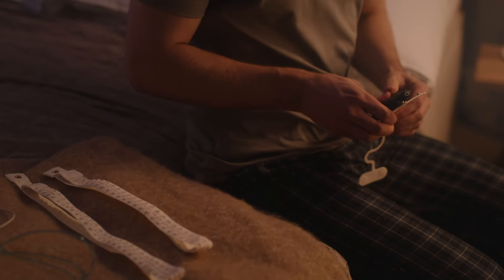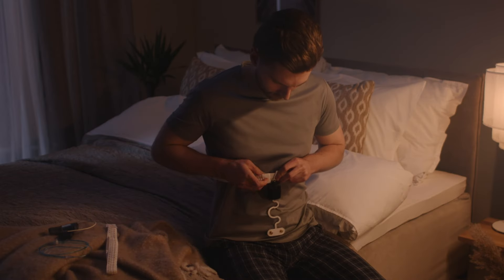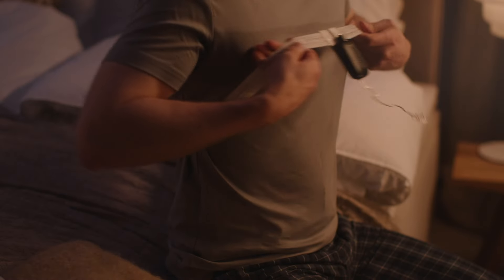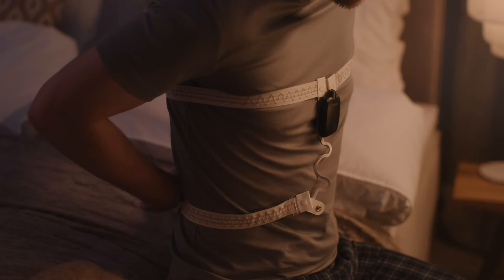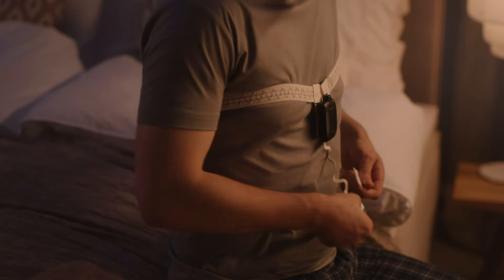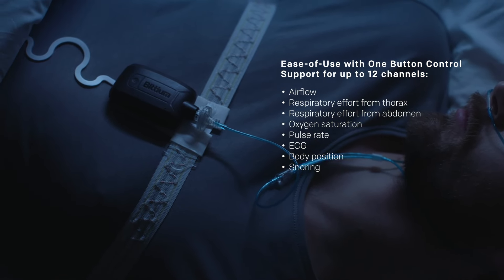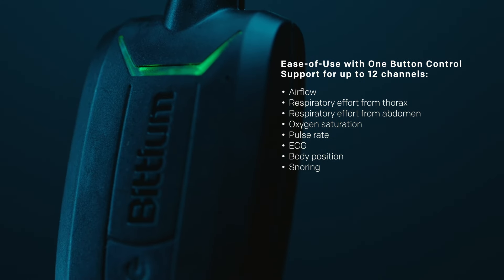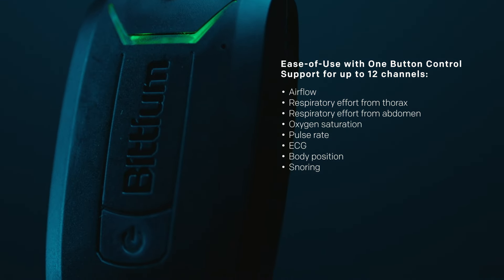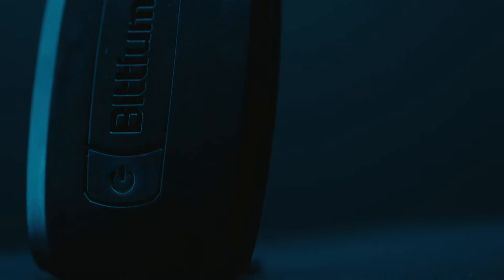Bittium Respiro is an easy-to-use and ready-made package for performing sleep apnea tests at home. The device's small size, wireless connectivity, and one-button operation makes it comfortable and convenient for the patient. The solution supports measurements for up to 12 channels, including airflow, respiratory effort from the thorax and abdomen, oxygen saturation, pulse rate, ECG, body position, and snoring.